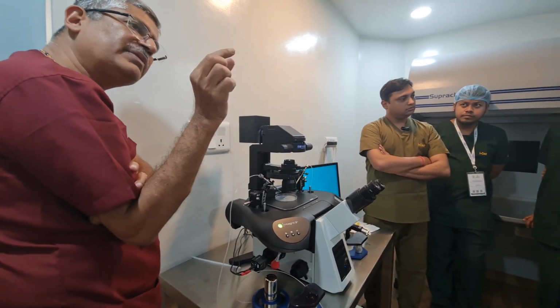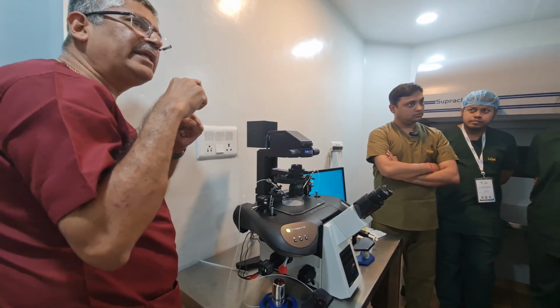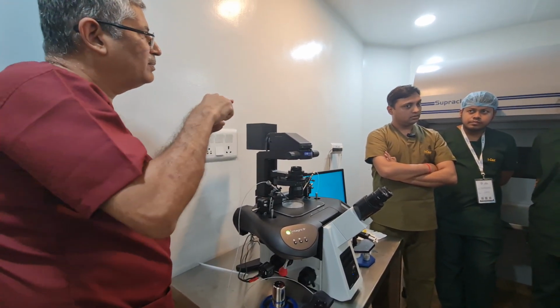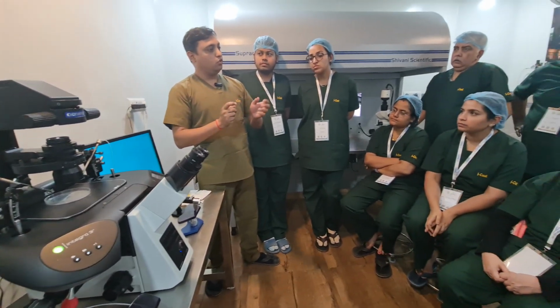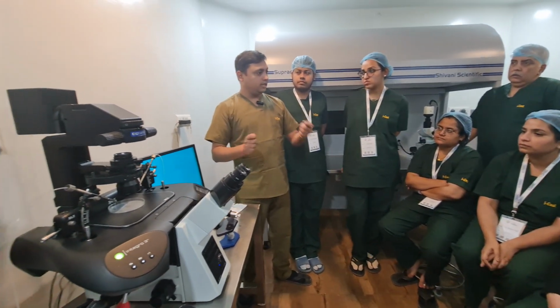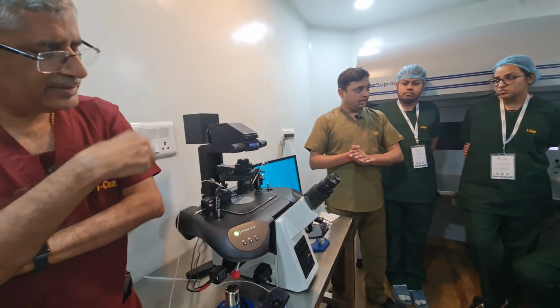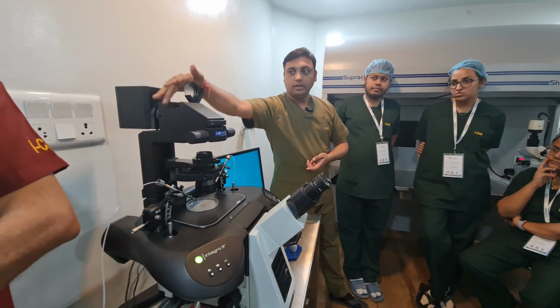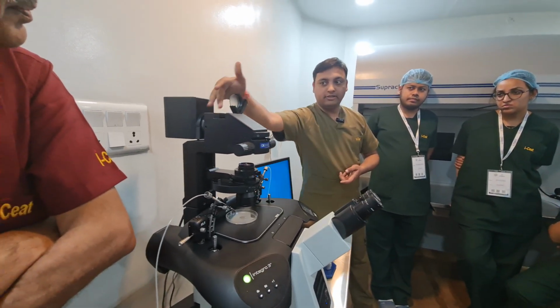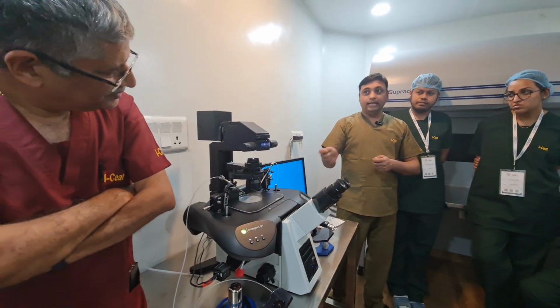But nowadays we are shifting to LED lights because the life of an LED light is very high. LED strip comes into this. Yes, sir, I told the people who earlier used to work with halogen, they like to work with halogen only, the yellow light. But once this is yellow light, there are filters. People need to put that filter, then this light will convert into white, and easily they can do it.